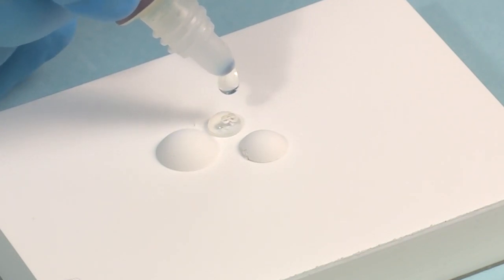Try to eliminate bubbles from the gel. To do this, shake the bottle three times before using.